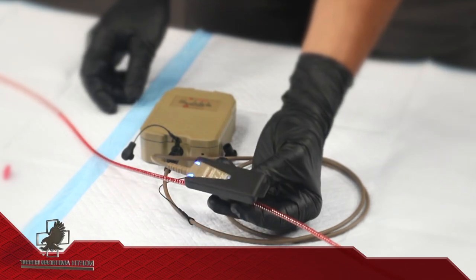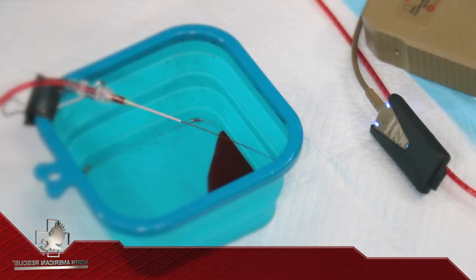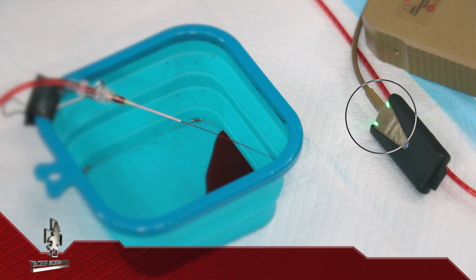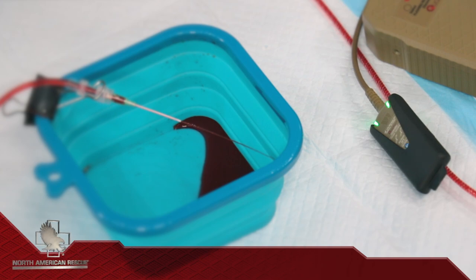Adjust the flow as desired. From this point forward, the system will display its operational status by means of the LED lights on the controller. Solid green lights will be displayed when the fluids have reached a set point temperature.